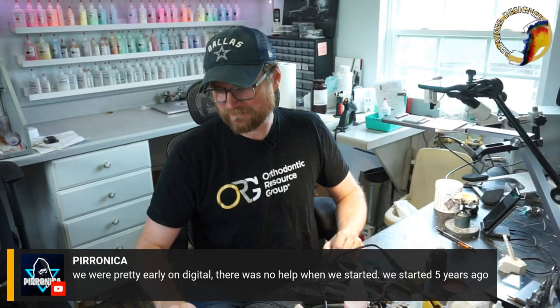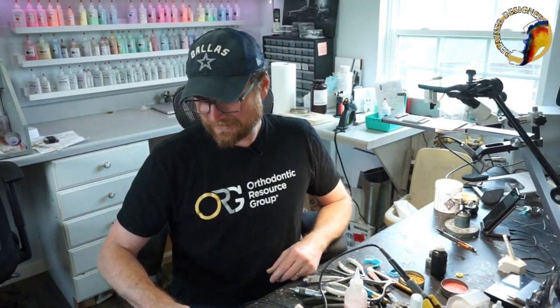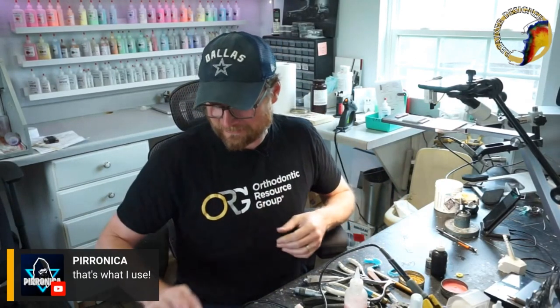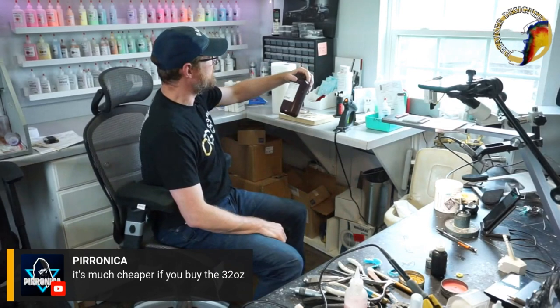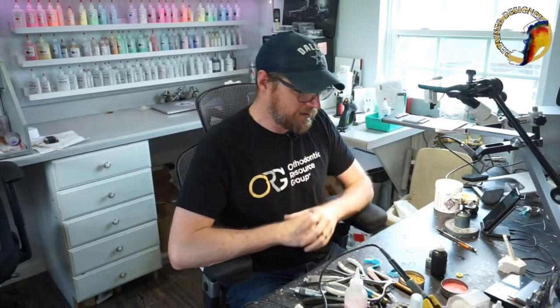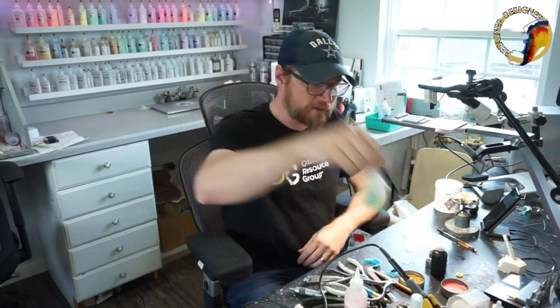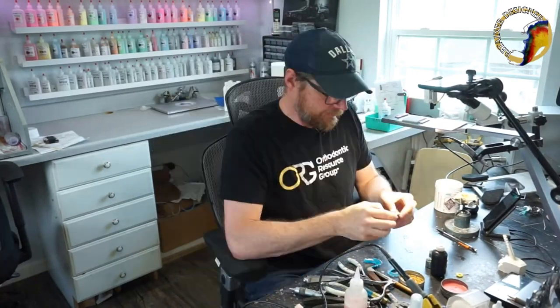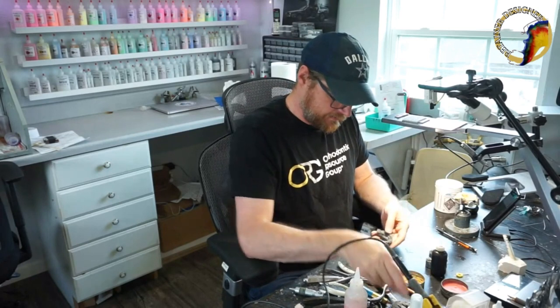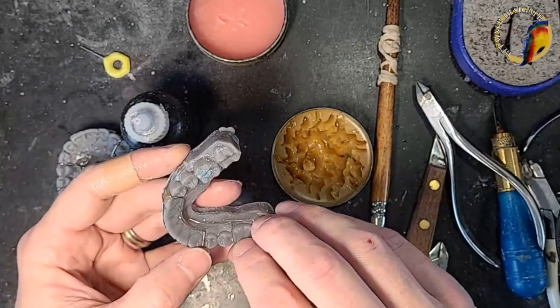It's about $250 for a little six-ounce jar of that separator — last time I checked. It's much cheaper when you buy the 32-ounce or one kilogram size. That's what I use for these 3D printed models. Now that's dried, I'm going to make a few small adjustments.